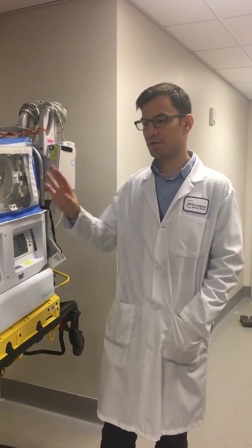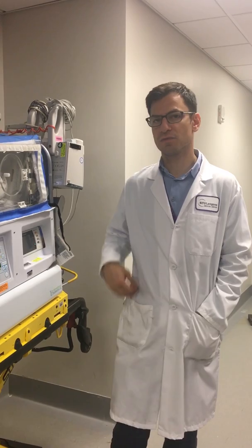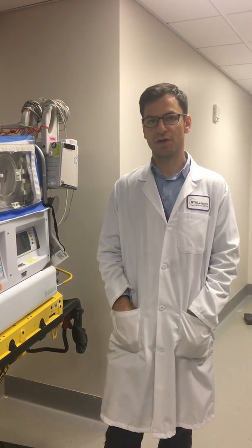Hello. Hi. These are a series of videos we're going to do for the Respiratory Care Department at NYU. This first one is just an introduction to the Isolet from a respiratory care perspective — what's going on with the Isolet and what we need to know.